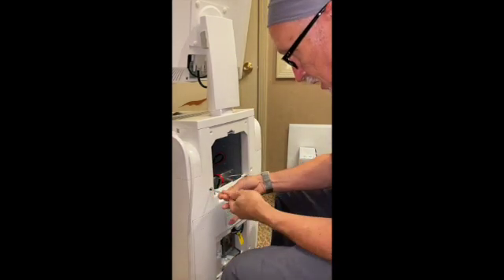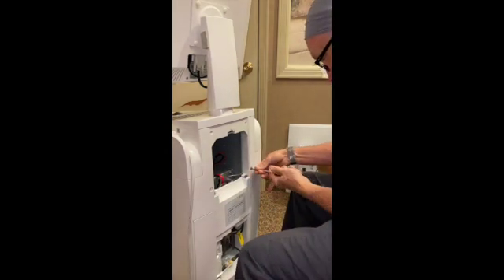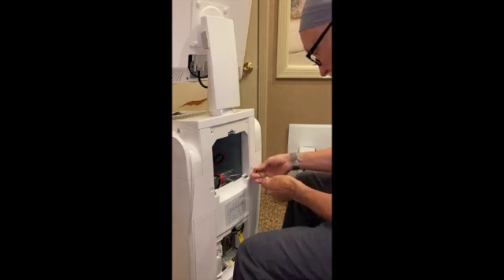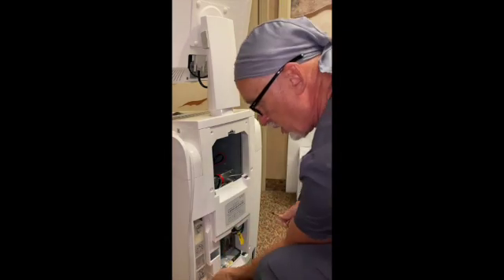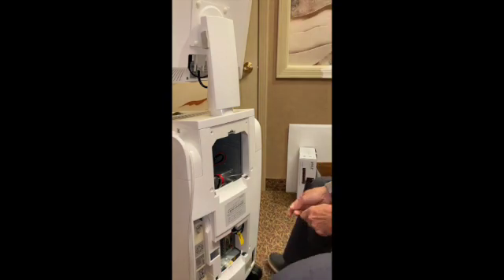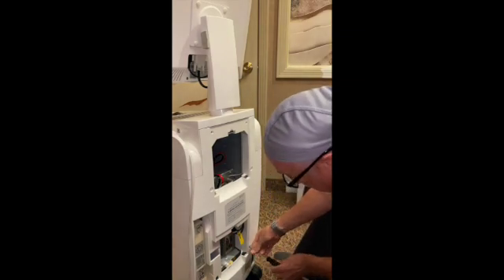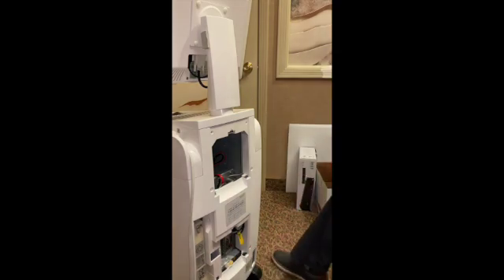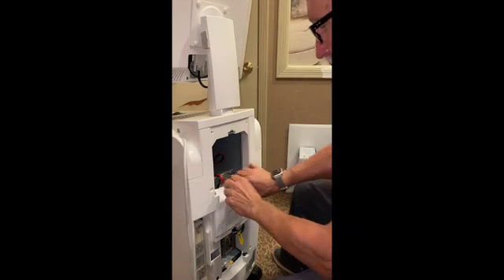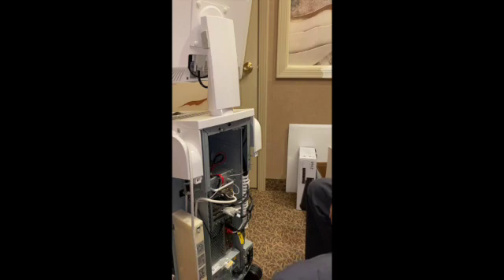There's another one — these are all the same size, and there'll be some other screws inside here that are also the same size. We've flipped this off. This is where the backup battery is located. You can just unplug that backup battery right now down there at the bottom. Now, there's a longer screw down here with a nylon bushing, and then there's a medium-sized screw back in here — this unit's missing that medium screw. At this point I should be able to pull the panel off the back. Remember, there'll be a medium screw right down in here. Set the panel aside.